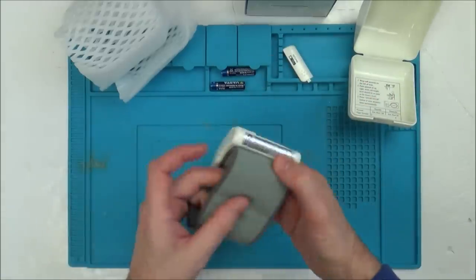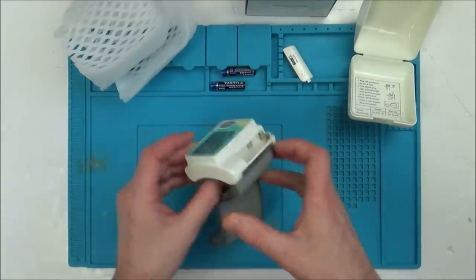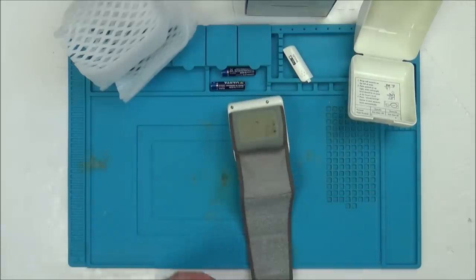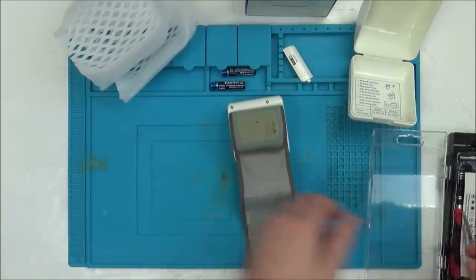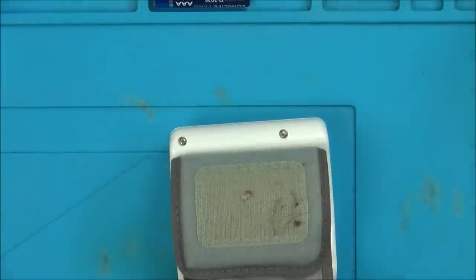The main thing is that I want to see the inside of this. I've only spent about £4 something, so it's not a huge amount of money. I'd like to see how something small can grip so tightly. So let's open it up - it looks like we've got two little Phillips screws here. I think this one's just going to be interesting to see the inside of.